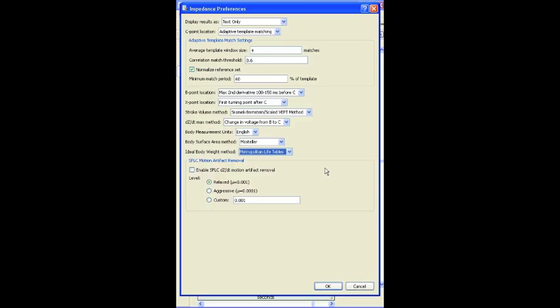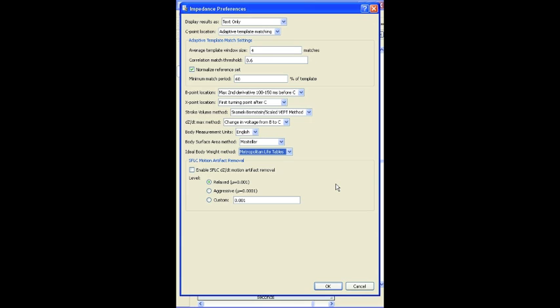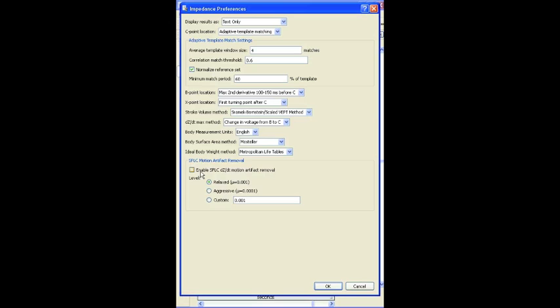However, my recommendation is this is a last resort. You really want to try and get good clean data before you start to do the analysis. But if for whatever reason you've got some noisy data, you can turn this option on. And it's actually a modeling type of tool that will go through and learn the waveform. But it's much better if you don't have to use that.